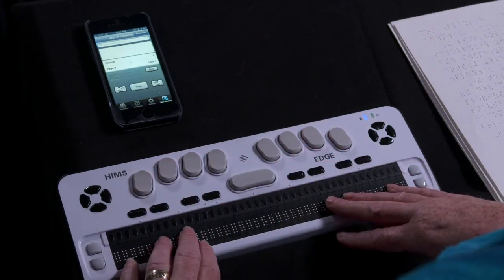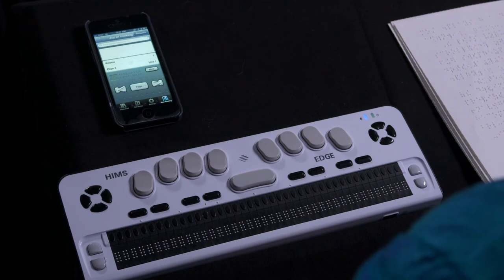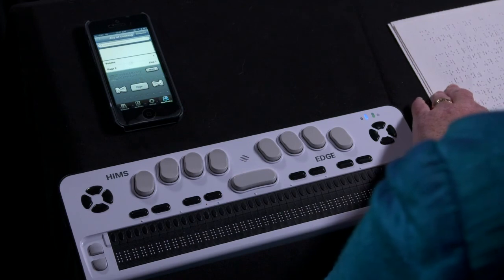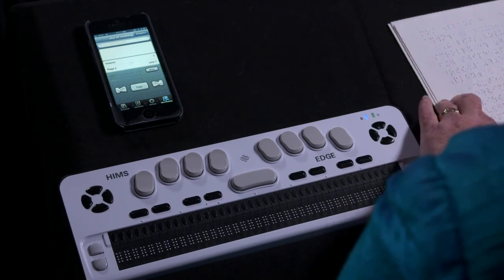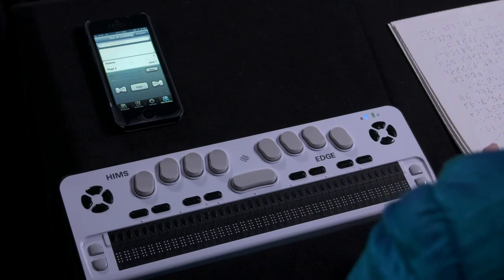A P on the Braille display for previous will move to the previous page. There are navigation controls on the bottom half of the device's interface. Though the Jump By, Previous, and Next buttons can be used to navigate a Braille book, it is strongly recommended that you use the shortcut keys on your Braille display.